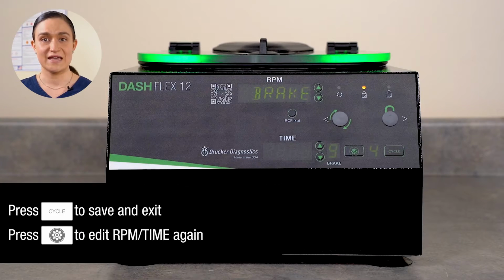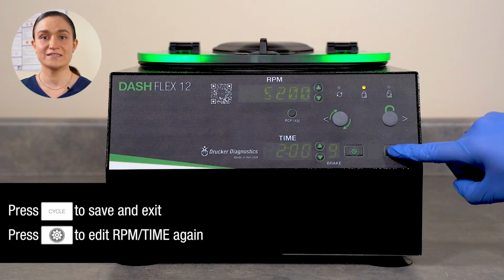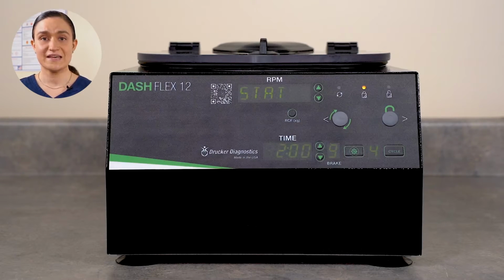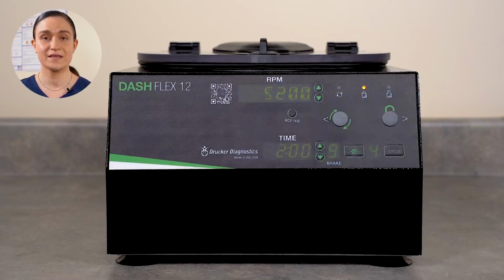Once your brake value is set, you can press the menu button to resume editing your RPM and time values. Once you're finished editing, press the cycle button to save and exit edit mode. Your preset has now been edited. You can check the new settings by pressing the cycle button until your new preset's name shows in the RPM screen. The RPM screen will alternate between showing the selected cycle name and that cycle's programmed RPM value.